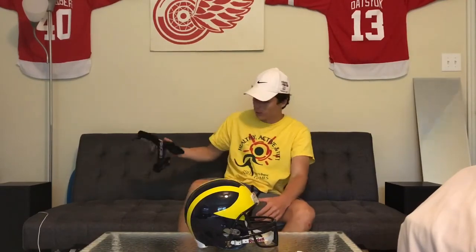What's going on guys, this is Matthew B or Matt Plays Basketball, and today I'm coming at you guys with a video that was requested — a review of the Aircast ankle brace.